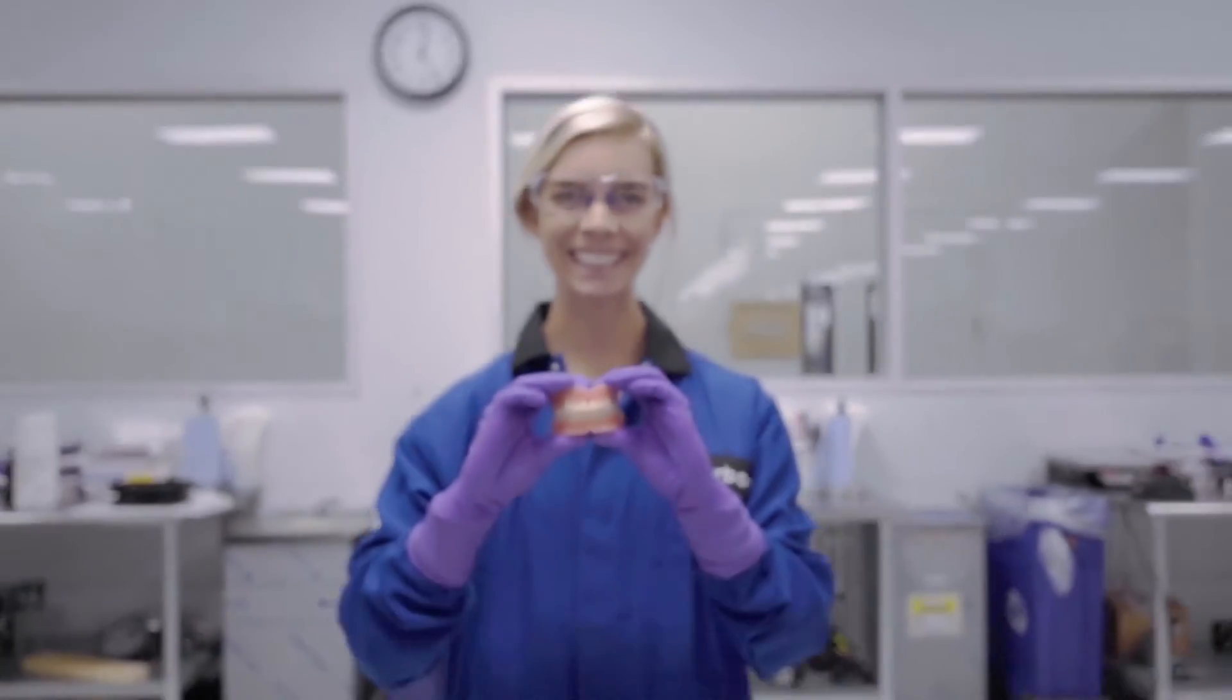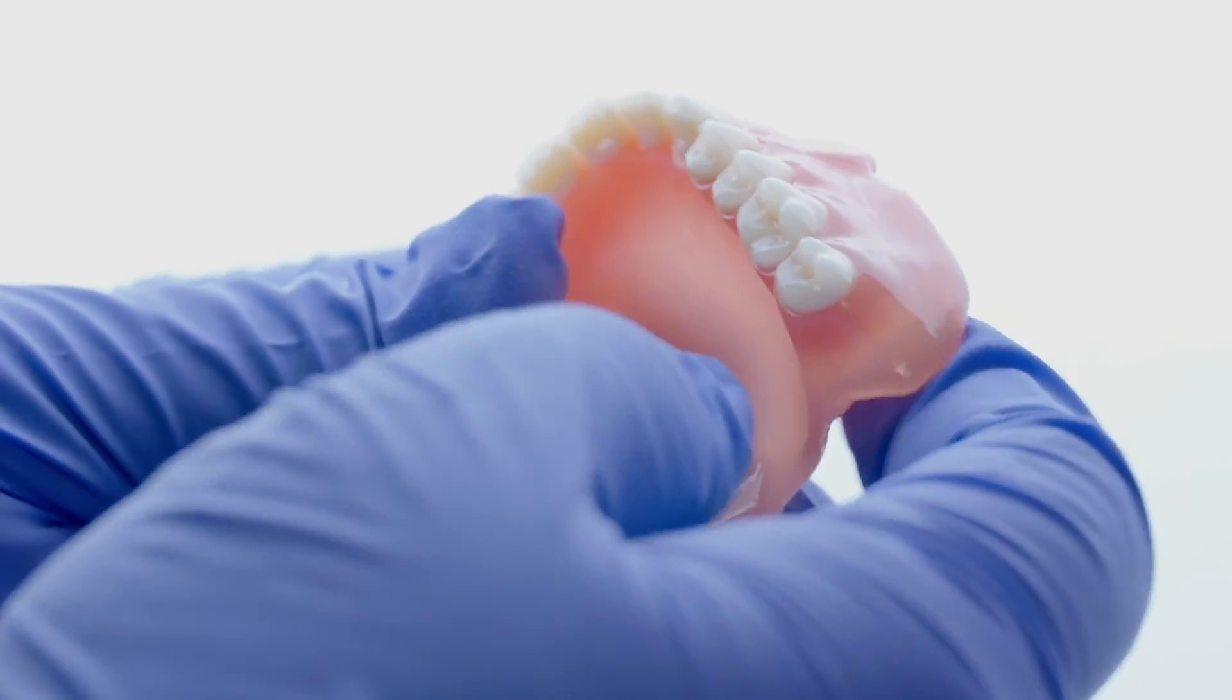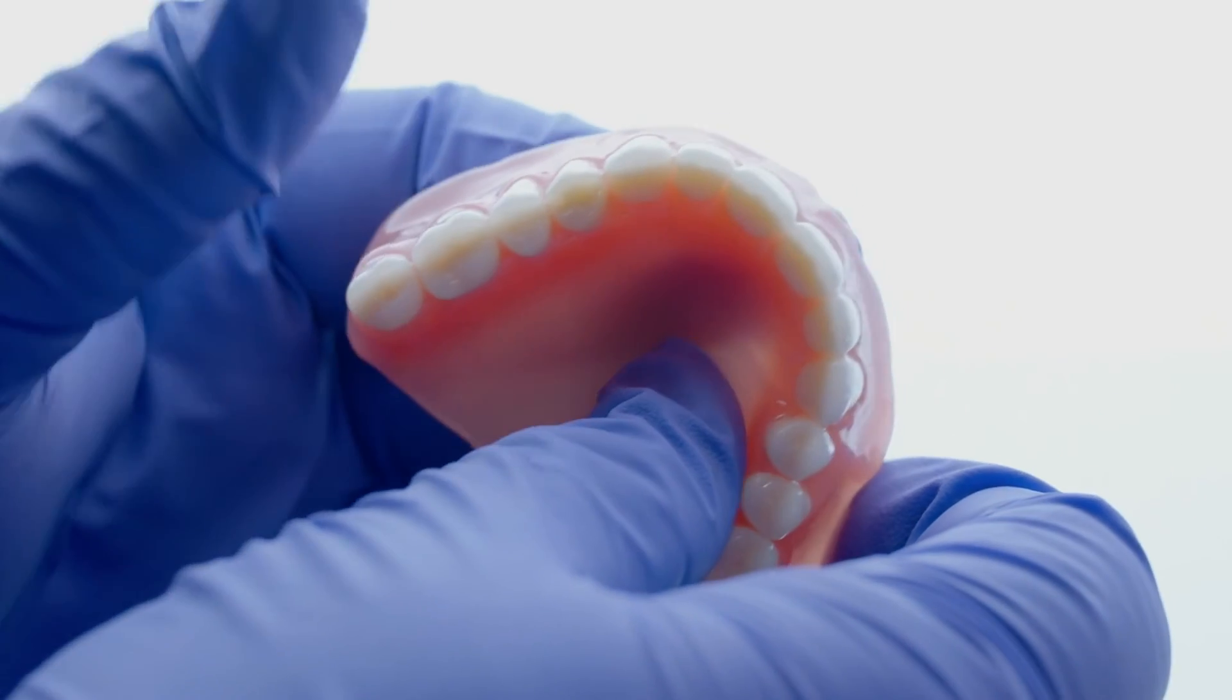I feel very confident that we can deliver something that's going to be as accurate as possible for them. A lab powered by Carbon will allow me to make probably the best denture ever made.